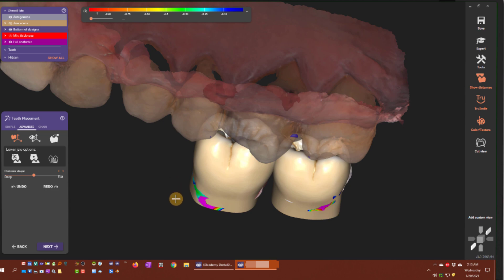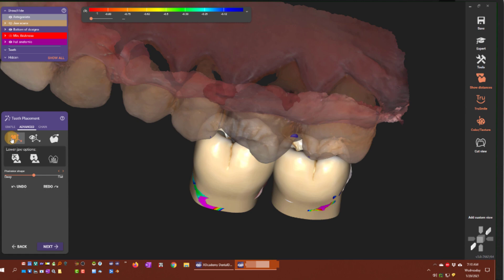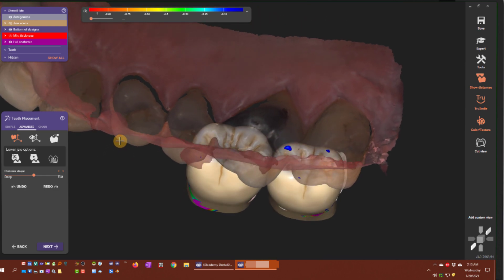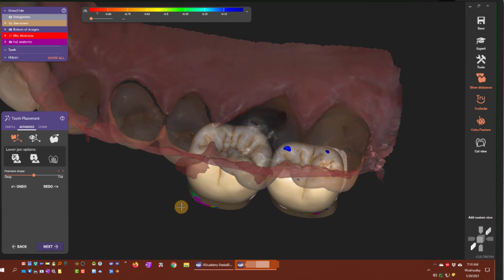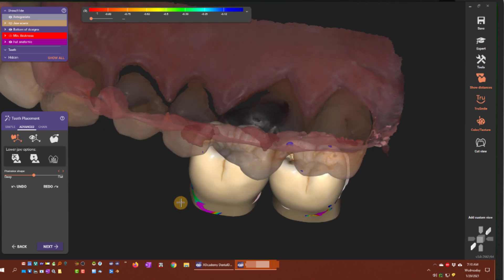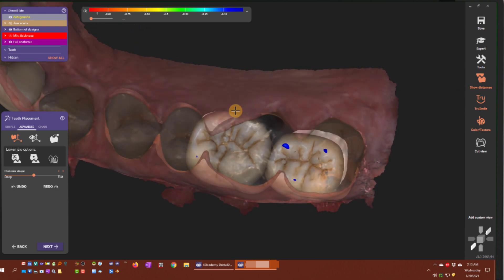We're going to focus on number 19 right now — don't worry about 18. These first two options are the scaling axis: do we want that scaling axis to be relative to the tooth dimensions, or relative to your view? So as you rotate, is the axis going into the monitor, versus the tooth axes — the bounding boxes of just the teeth.